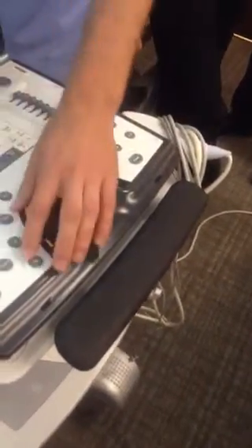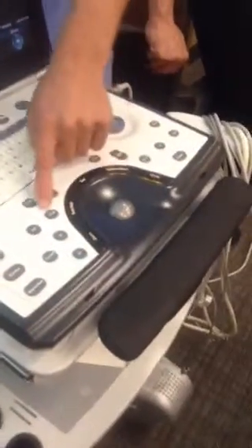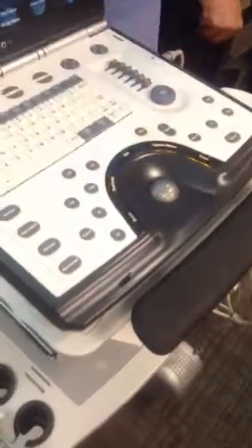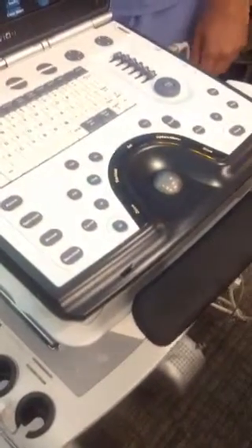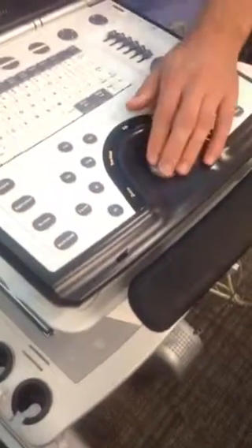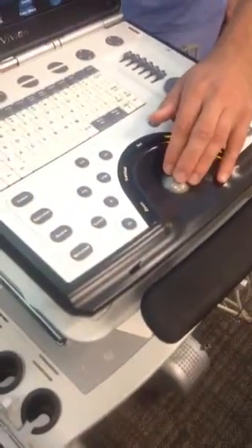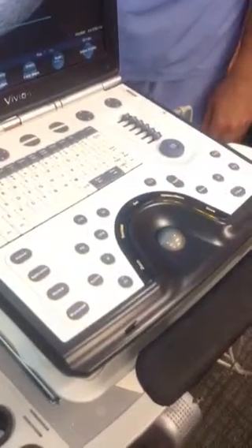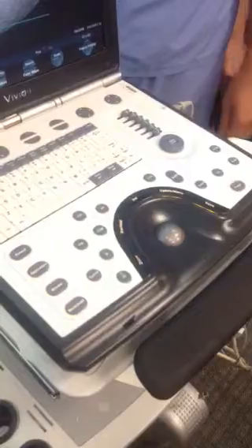You said the color. So 2D again is live because it's green. Color flow. I don't know what the M's for. Mode, yeah, probably. So that brings on your color, and then you have a box that you can move around to get your region of interest where you need it. Questions on that? We're going to cover this when we start scanning, and you will probably better understand and appreciate it once we start scanning.